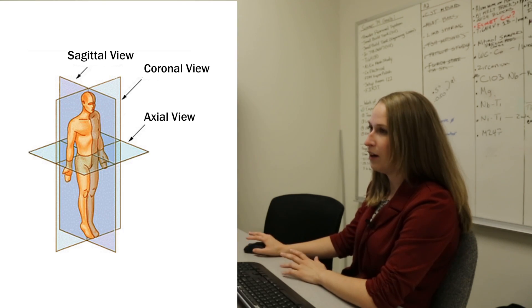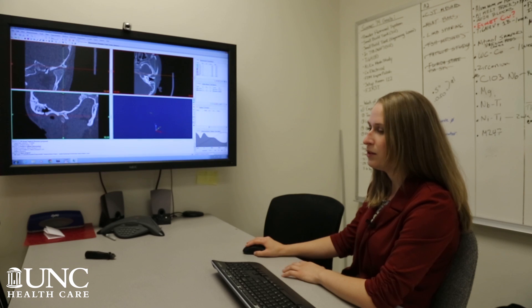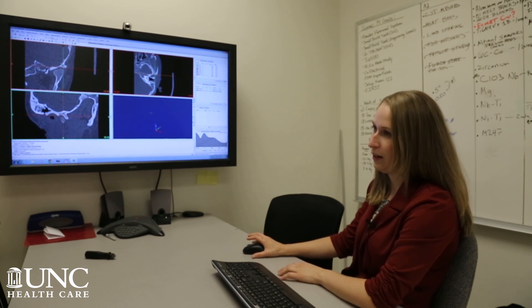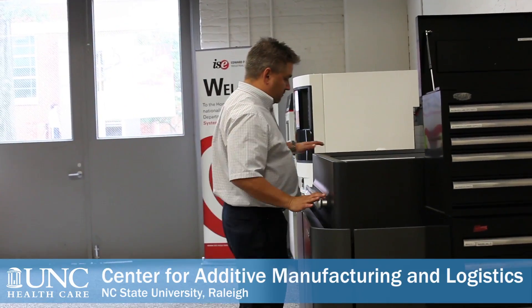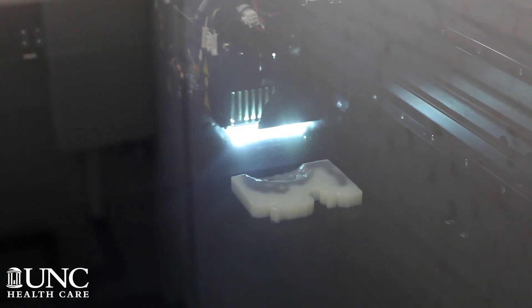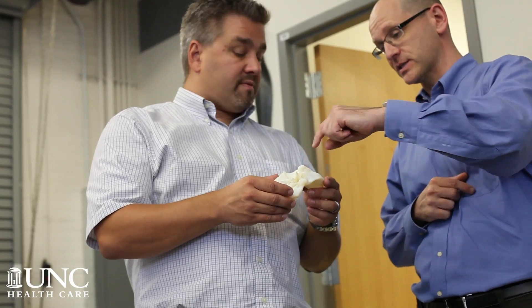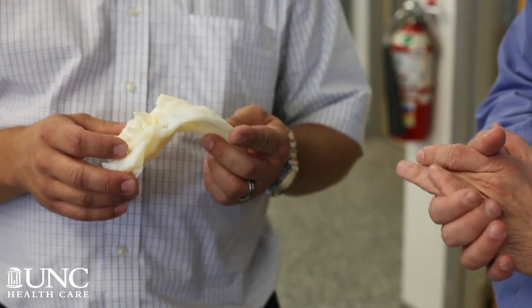We realized pretty quickly that there's a lot more to it for a good surgical simulation for our residents to learn and practice. That included all the soft tissue structures like arteries and veins and nerves. What we're looking at here is a patient CT scan from a pediatric patient. You're looking at the three axial, sagittal, and coronal views of the CT scan. This software will basically turn these shadings of dark and light pixels and translate that into what is bone, what is soft tissue, what is air. The real challenge is to go all the way from a medical imaging scan to a 3D printing model. There are usually a lot of hurdles, and there's a steep learning curve especially for engineers. We can't develop something like this without the medical side, and they have a hard time doing it without us. So the collaboration is really what is driving this.